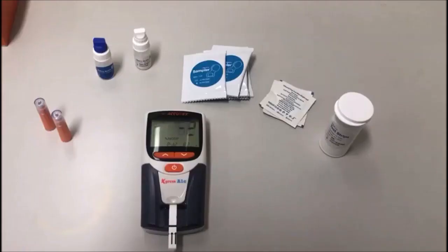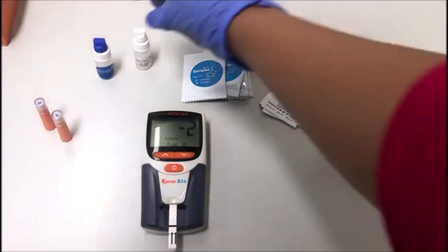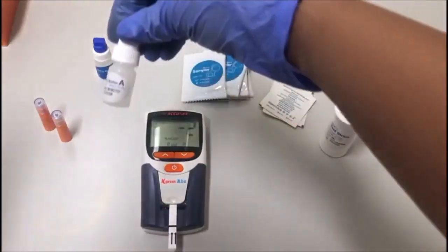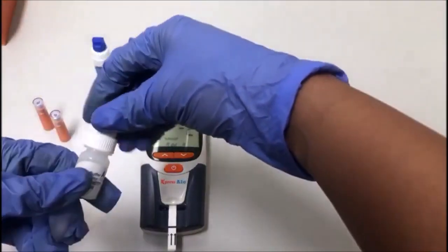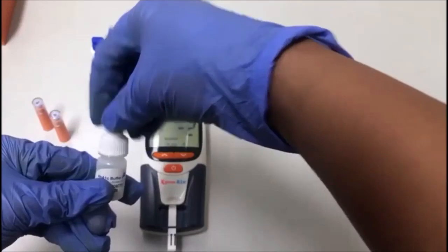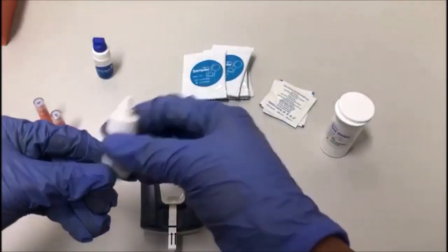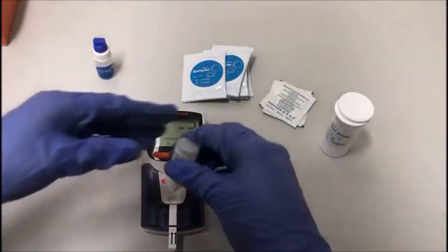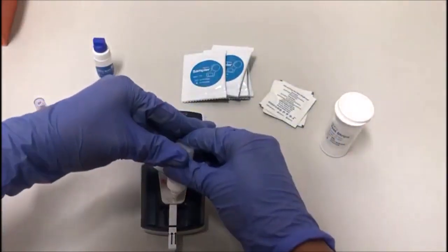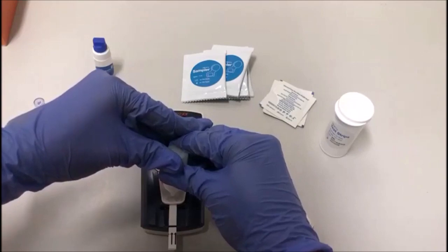Please add three drops of buffer A. While opening the buffer vial, unscrew the upper cap. Add three drops of buffer A continuously and vertically, without making any angle.